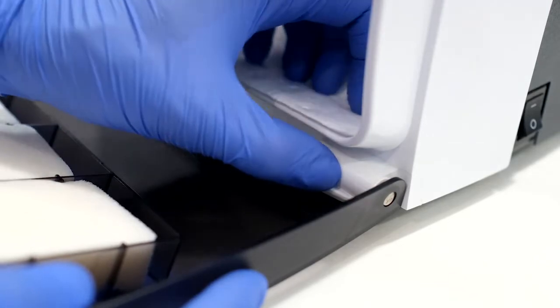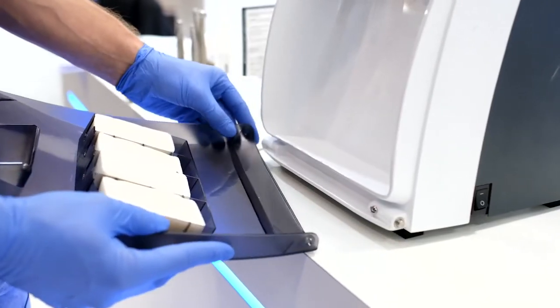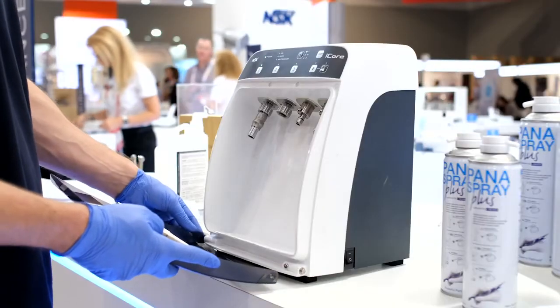To detach the door, simply slide the detachment lever to the left and unhinge the door from the pins on each side. Simply do the opposite to reattach the door.